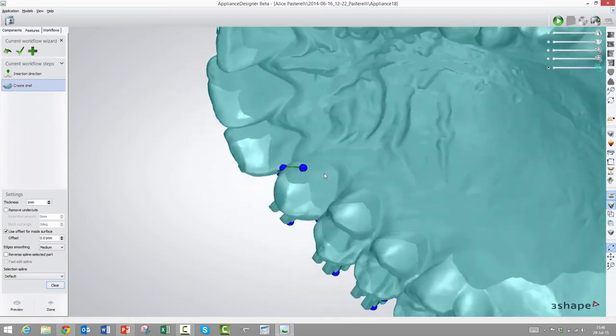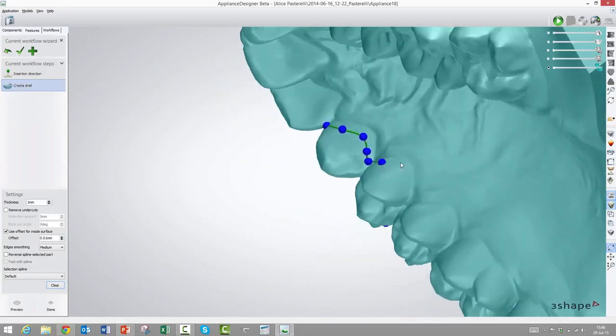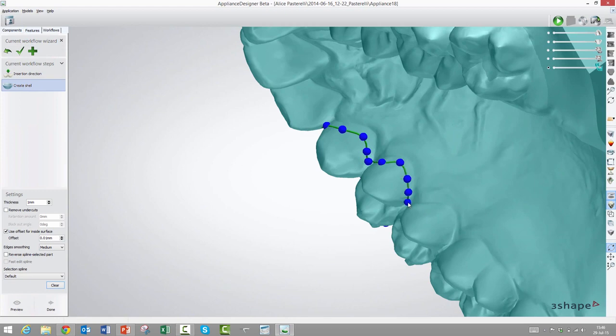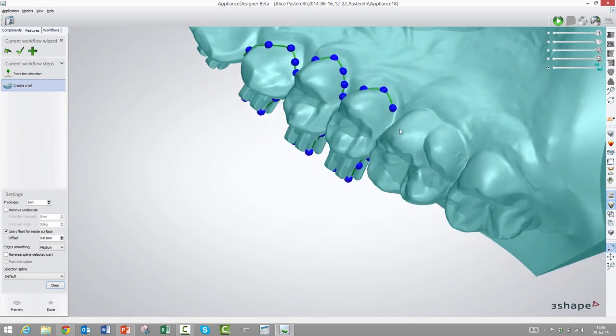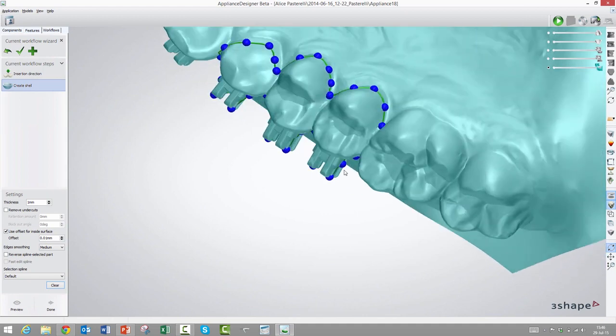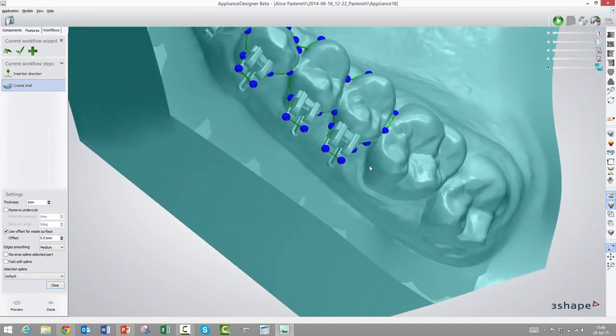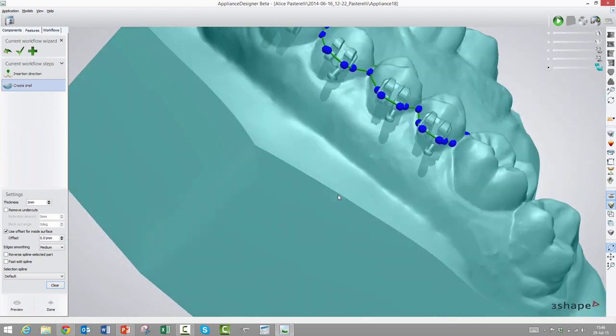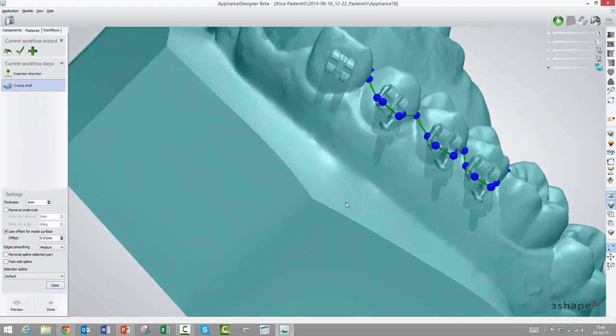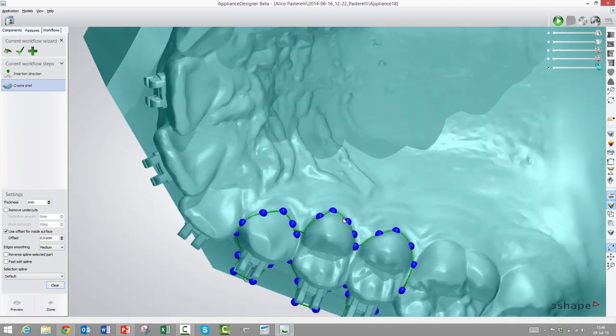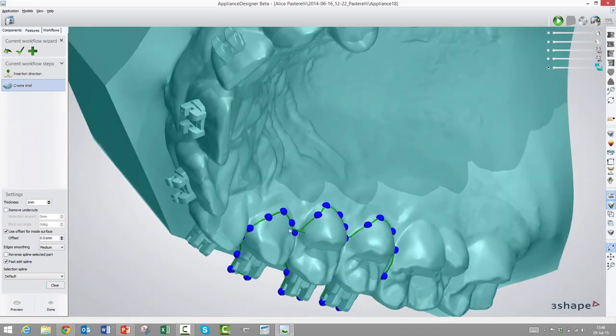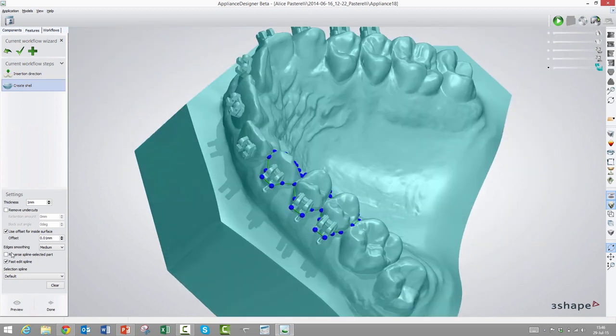Now we will just go in and make the other edge of the transfer tray here. This would be a fairly soft material. In fact, we've seen prototypes already, and it's sort of a hard rubber property, so it seems ideal for this. We could even make it grip around some undercuts here on the back side and it will still be able to let go. So we will go around here and then we will close the spine here. Now we could correct any mistakes, maybe move them around a little. If you made big mistakes, we could choose to do a fast edit session and then just sort of draw like with a pencil and then it will adjust them. But let's try to see what we have so far.